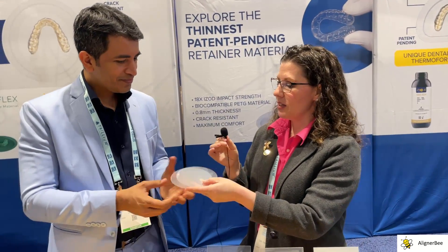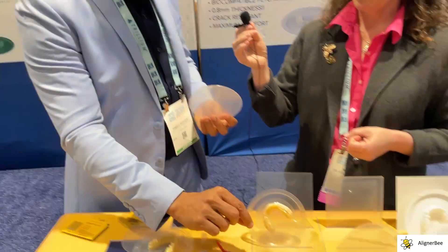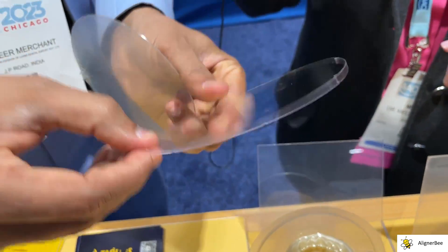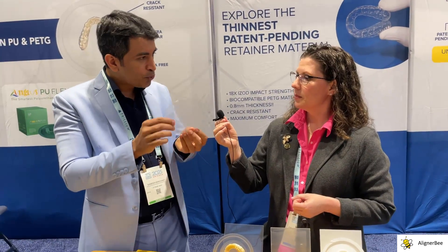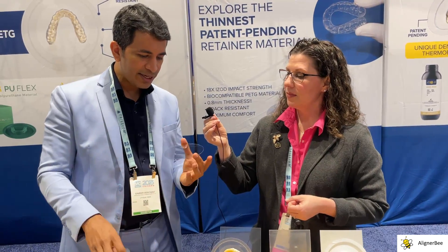One of the questions I'm often asked by doctors is about the protective sheet over the materials. Could you explain when is the best time to remove the sheets — when should you vacuum form with them on and when with them off? You should always vacuum form with the protection layer on. If you take the disc and use it without the protection foil, you would start seeing smudge marks, and they're very hard to clean. So with the protection foil, you thermoform, cut, finish, and polish. Then at the end, you can very easily just peel on one side, peel on the other side, and you will see it's super transparent.